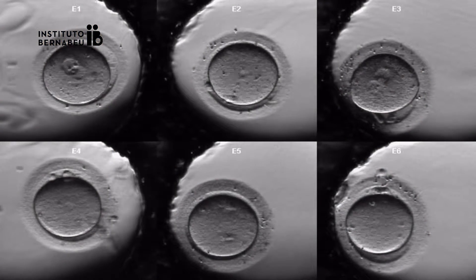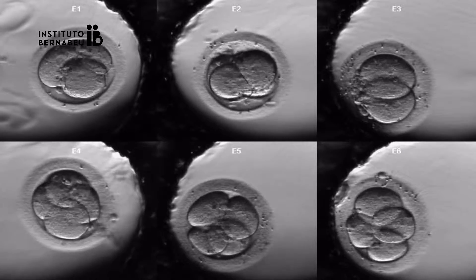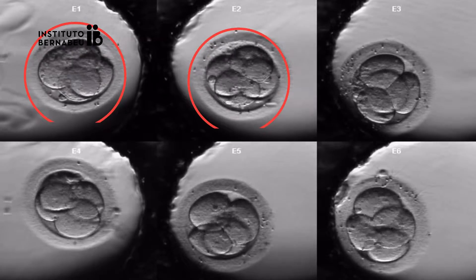Before performing the embryo transfer, specific software rebuilds all the captured images and allows us to see and analyze the embryo development in order to select the most suitable ones for transfer. Time-lapse observations allow us to analyze new development or morphokinetic parameters, which may improve accuracy when selecting embryos with more potential to result in an ongoing pregnancy.